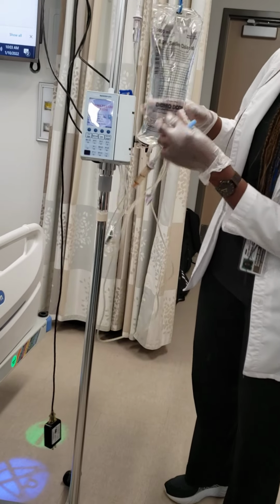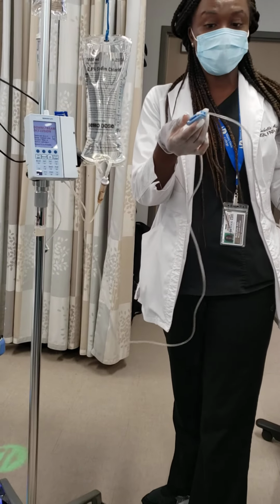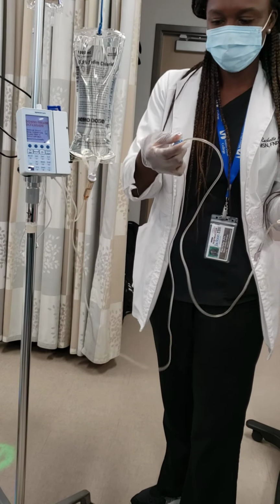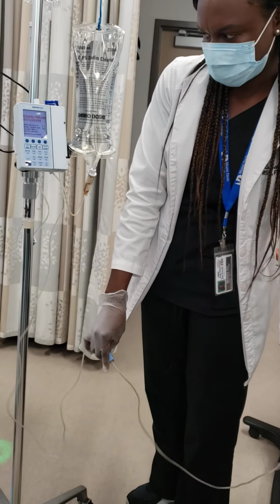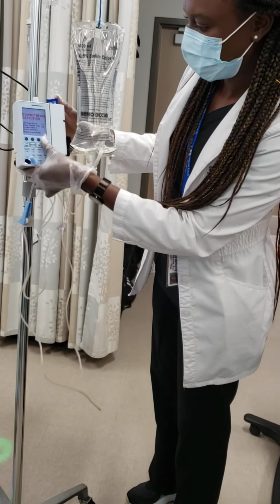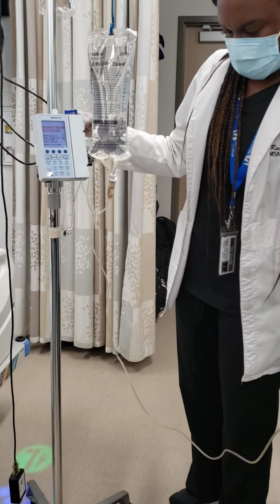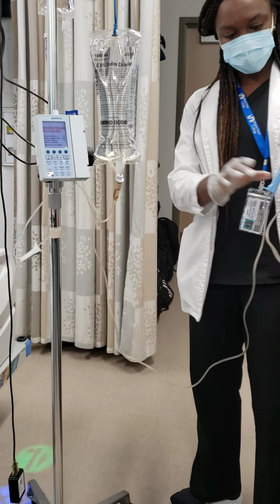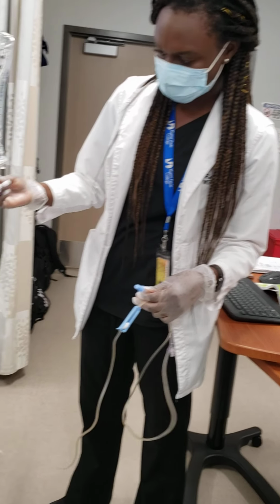So it's telling you, is it saying air in line? Look, downstream occlusion. It's saying here, I can't push it because something's occluded down there. And now if I release it, it should pick it up. Unless it's slow. It's slow. It's still not picking it up. Is it closing the tip too, right? No, it's open here. But because it's downstream occlusion, it's closed. It's closed from here? Yes, it's closed.